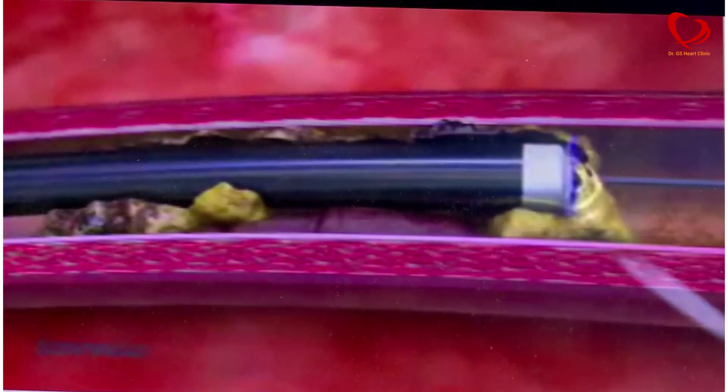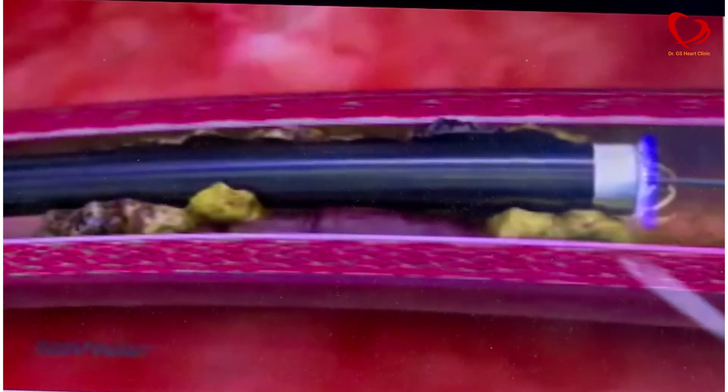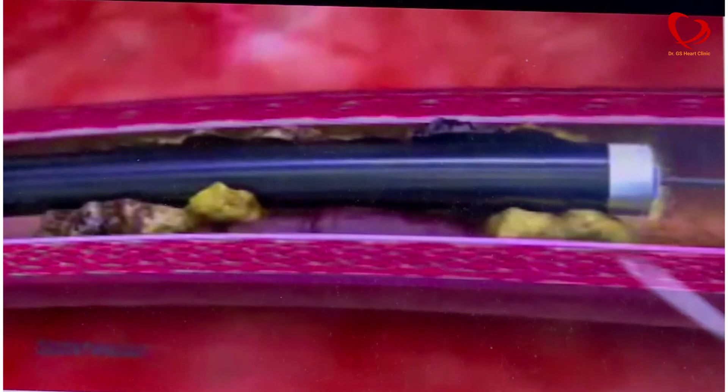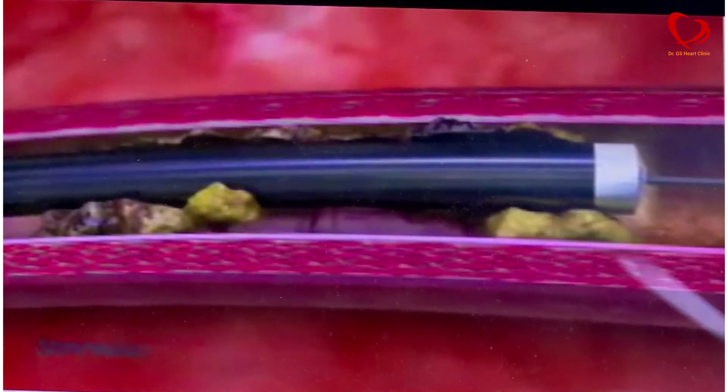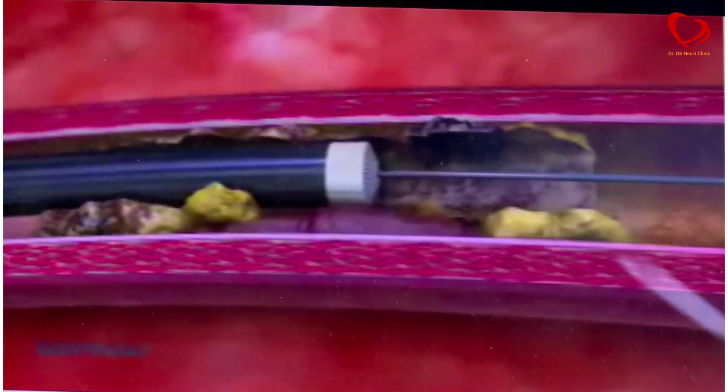The laser catheter — this is an animation where you can see the laser catheter moving forward. It ablates the tissue and emits ultraviolet rays. The laser causes sonic waves, which create a bubble, and the bubble helps to expand and debulk the lesion.